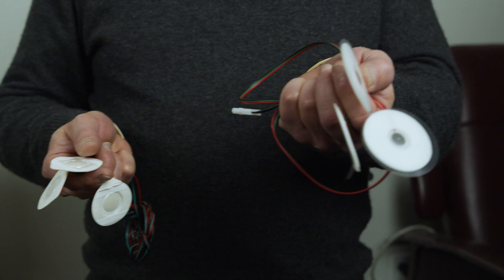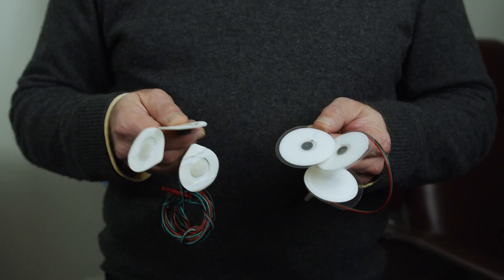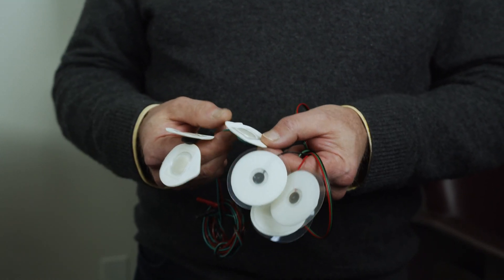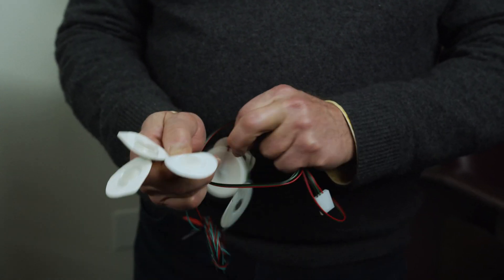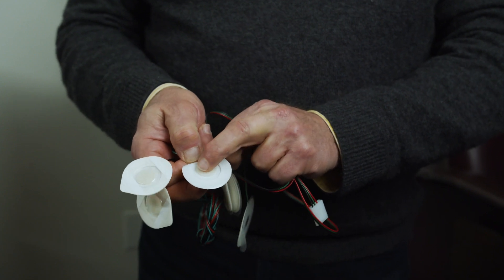Also very important have been the changes in gel technology. There have been volumes written about gel technology over the years. The old pads, like you see here, are a liquid gel pad. You can tell it's a liquid gel pad because once you peel it off, there's a big spongy area like you can see here, and we can push on this and it's very wet.